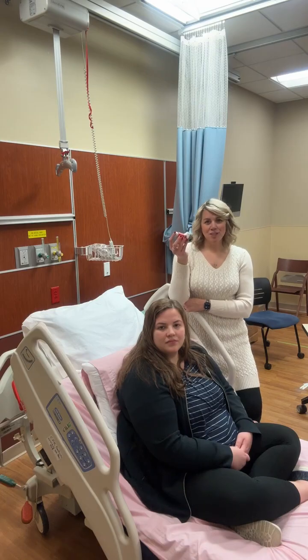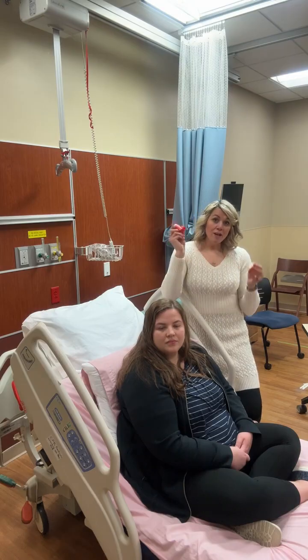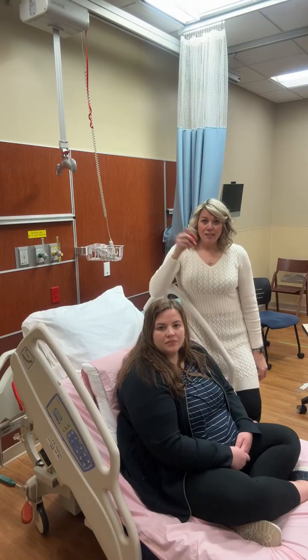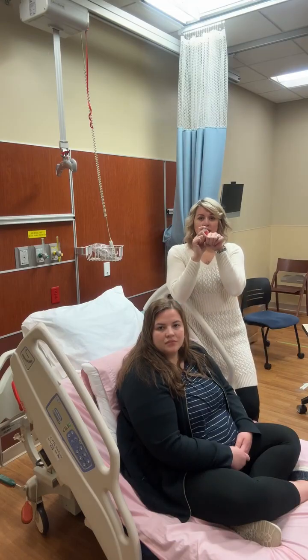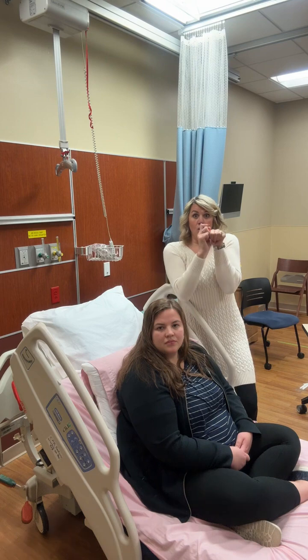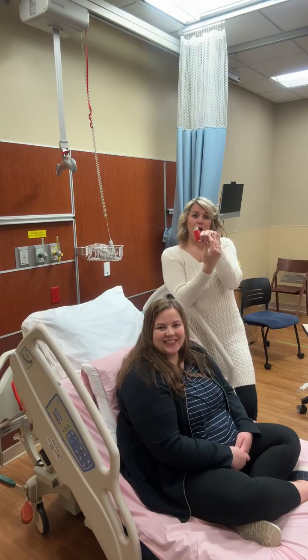There's this misconception that when you get an inhaler, you open it up, quickly shake it, stick it in your mouth, and take a real quick breath like this. You can see when I sprayed it, all of the medication went right here.